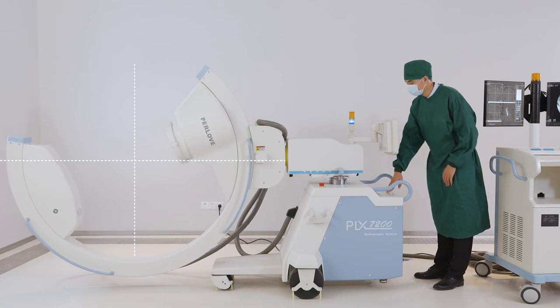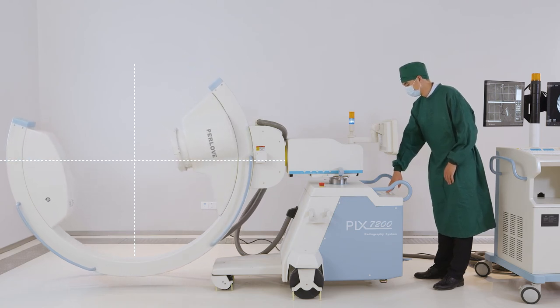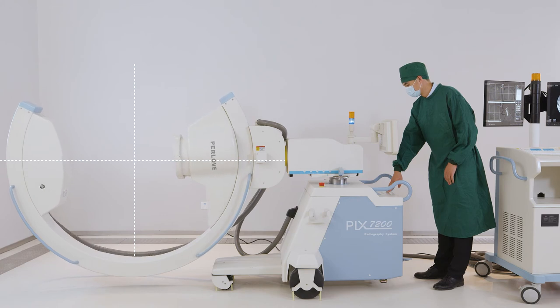It also helps to simplify the operation, shorten the operation time, and improve the operation quality.